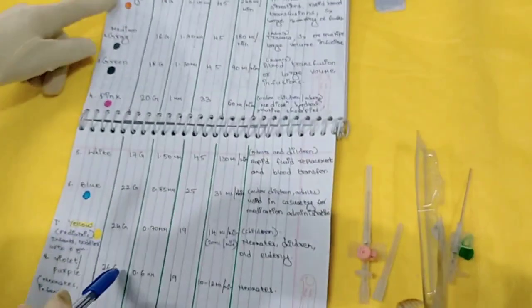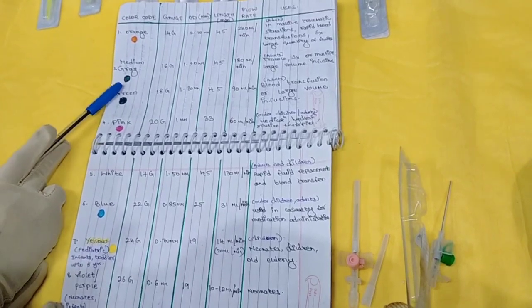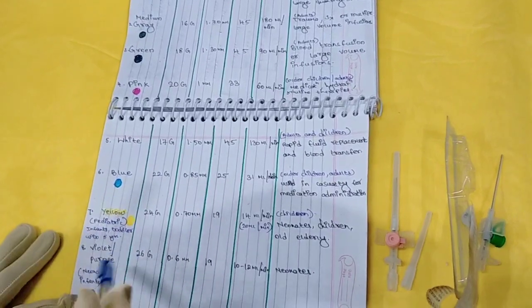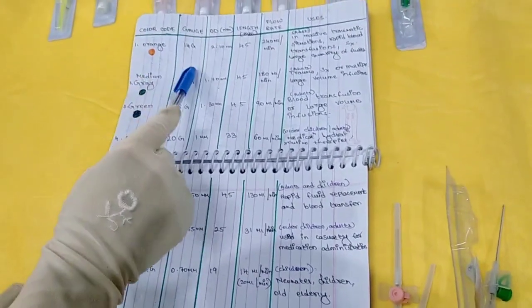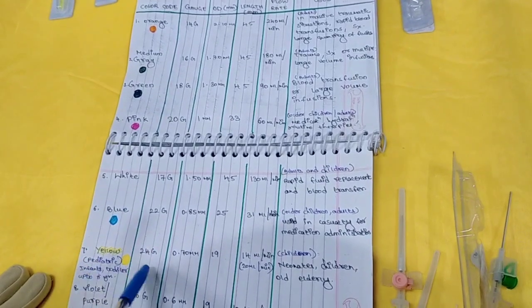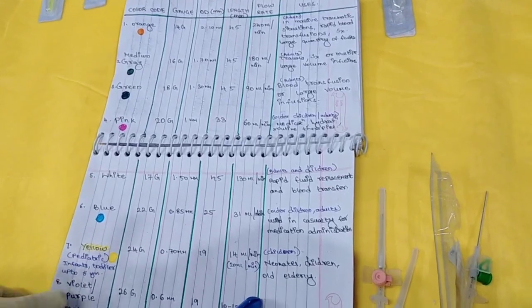To remember these color codes and their gauges, you can use this mnemonic: orange color magma under the earth (14G), gray color soil (16G), green color plants above the ground (18G), pink color flowers (20G), blue sky above it (22G), and then purple (26G). So: orange 14G, gray 16G, green 18G, white 17G, pink 20G, blue 22G, yellow 24G, and violet or purple 26G. Different cannulas are used for different purposes — as per the age group, requirement, and patient's condition.